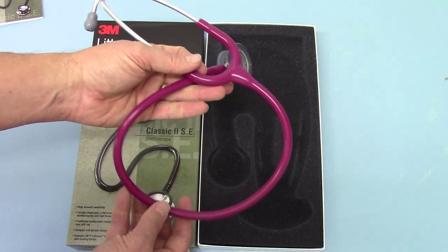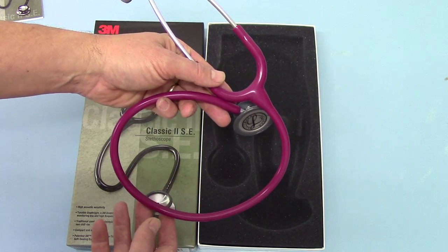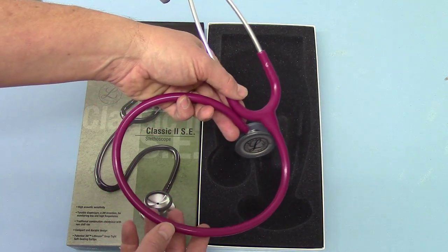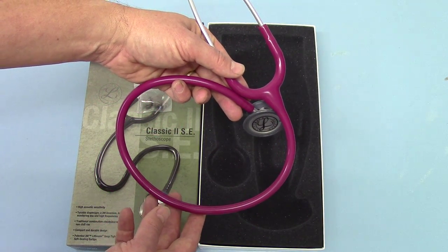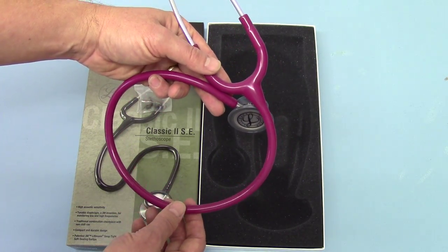The tube colour here — just giving you a nice view so you can get an indication of just how raspberry the raspberry is. It's more burgundy than sort of raspberry pink, to be honest, not too bright.